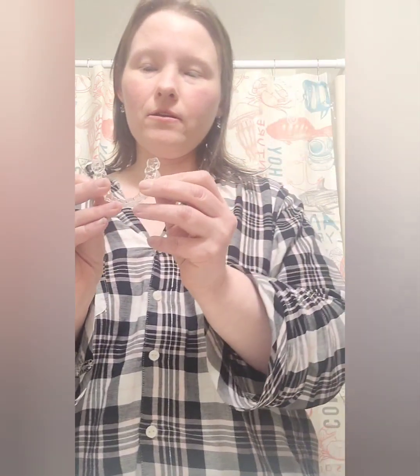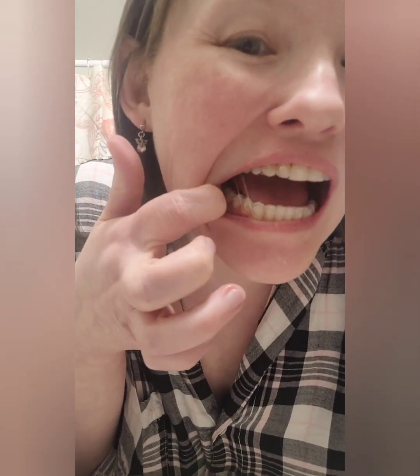It's upside down — unbelievable, I gotta flip it. You can't make this stuff up. Yes, that's right, I had it upside down. My hands are wet which isn't helping. So I have them on the little hooks... It's in! But this is where I'm afraid I lost the elastics again. I got it! Holy crap, I got it! That feels so weird!